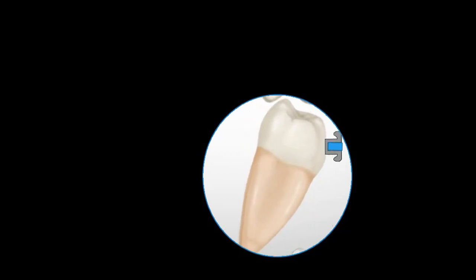So in this way, the normal torque values of all the teeth are changing just because these standard edgewise brackets are not made in accordance with the labiolingual inclination of the dentition.